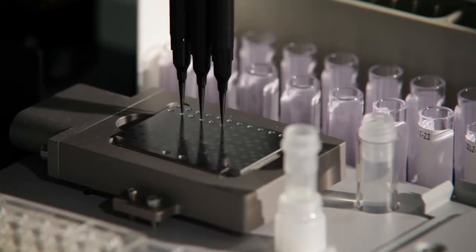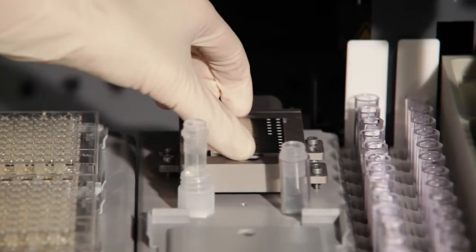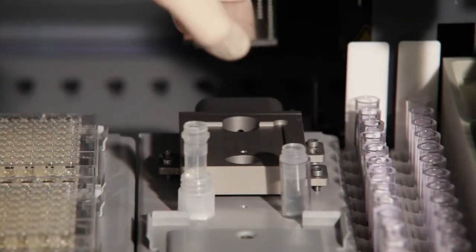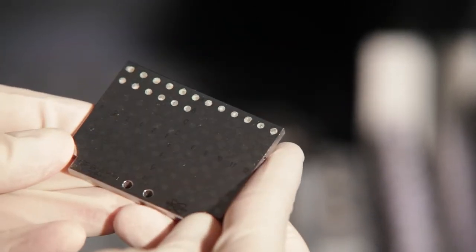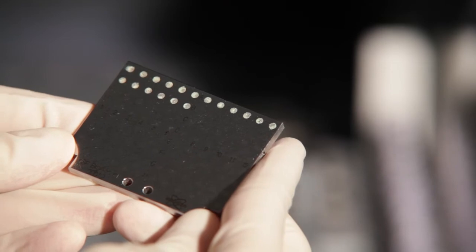A matrix solution is added to the dried sample. Further measurements and data analysis is done by the MALDI-TOF mass spectrometer MALDI-BIOTYPER, a product line of the German manufacturer Bruker Daltonik.